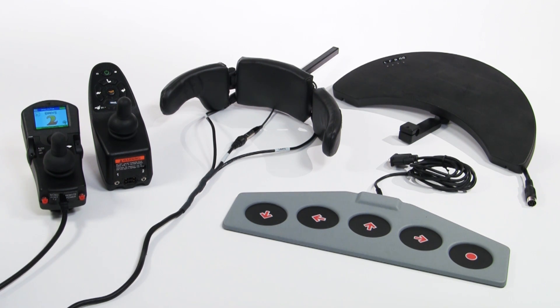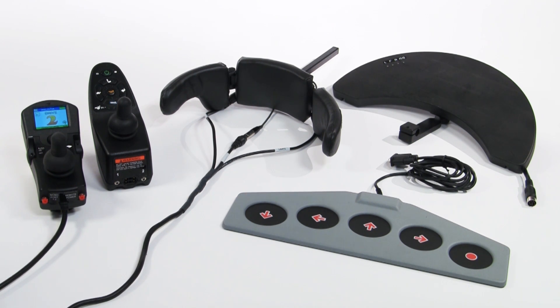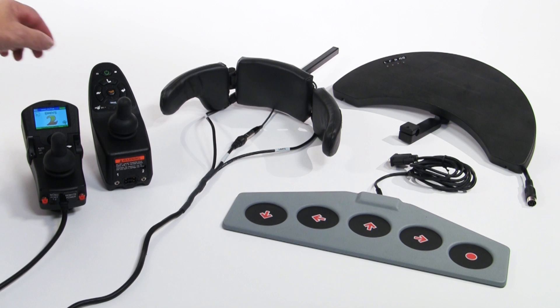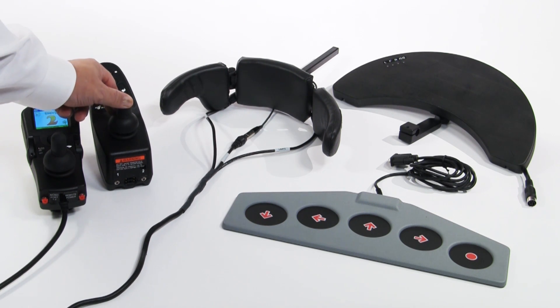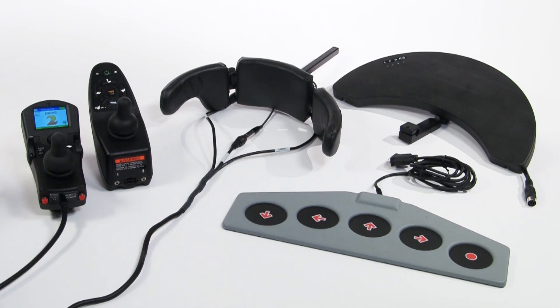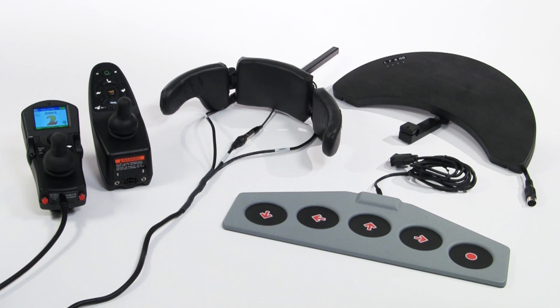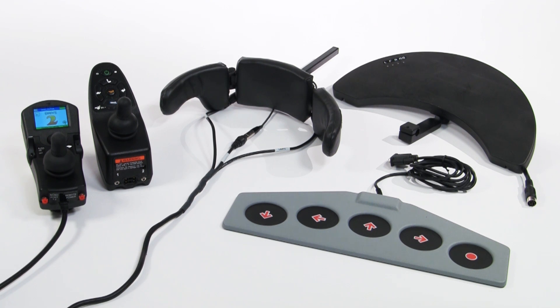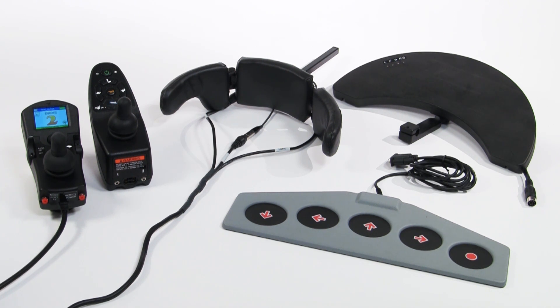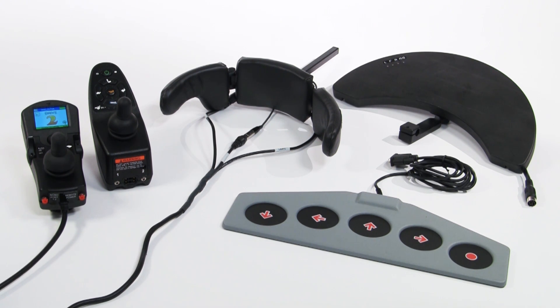Non-expandable control systems, such as those using an SPJ joystick, cannot accept digital or switch driver controls. Only expandable electronic programs can accept switch controls.